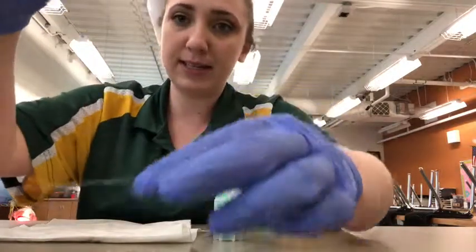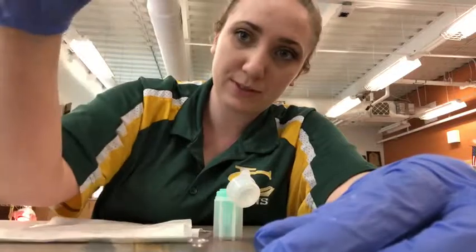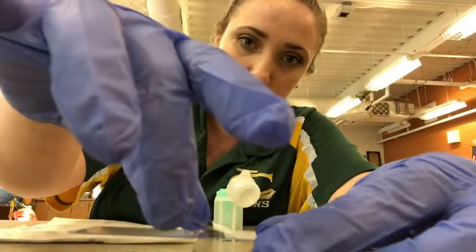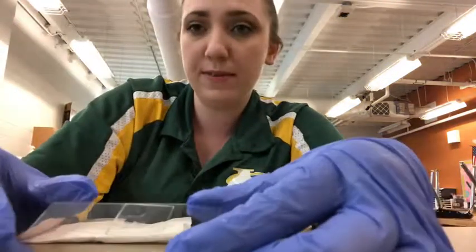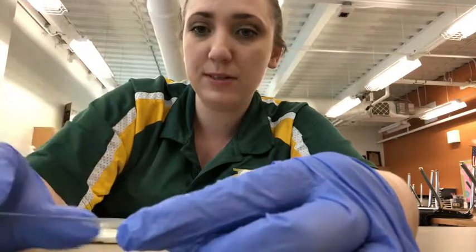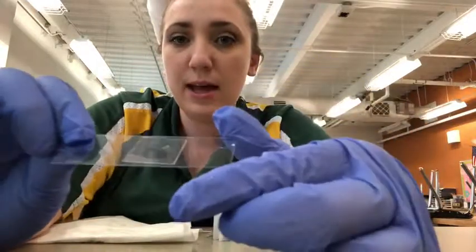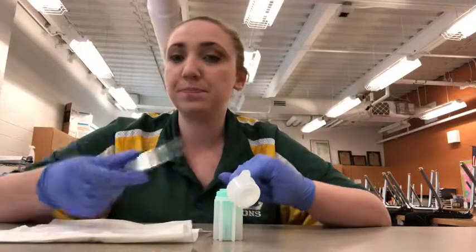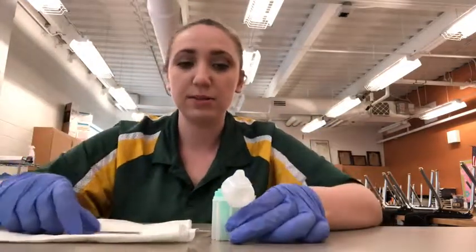And then we're going to place the cover slip. If you've never placed a cover slip before, you don't want to just plop it down straight. You want to use a slight angle as you drop it down to get rid of any bubbles. It can sometimes be difficult with gloves. So there you have your fecal sample, and we can place this under the microscope to try and identify what parasites might be present in this fecal sample.